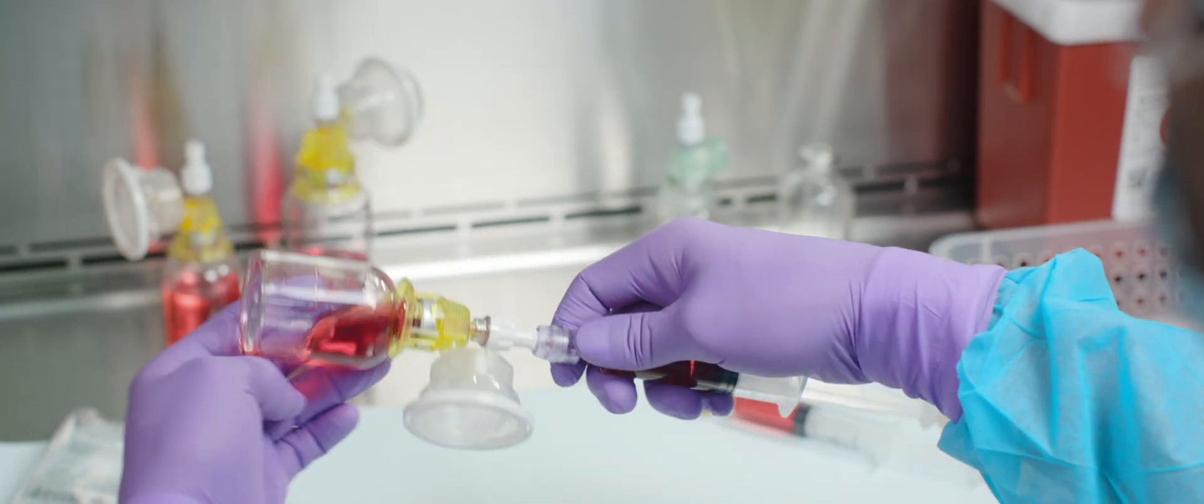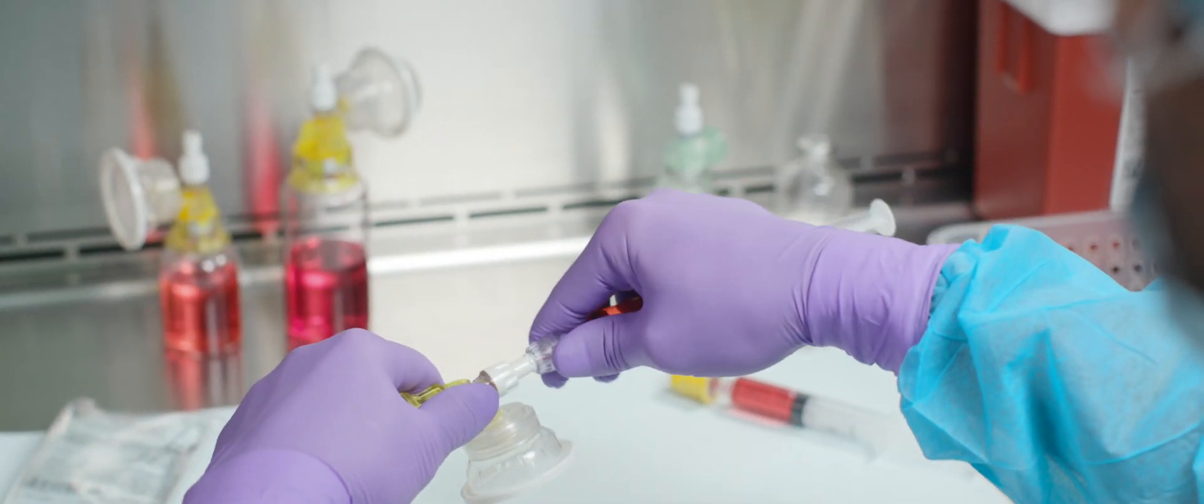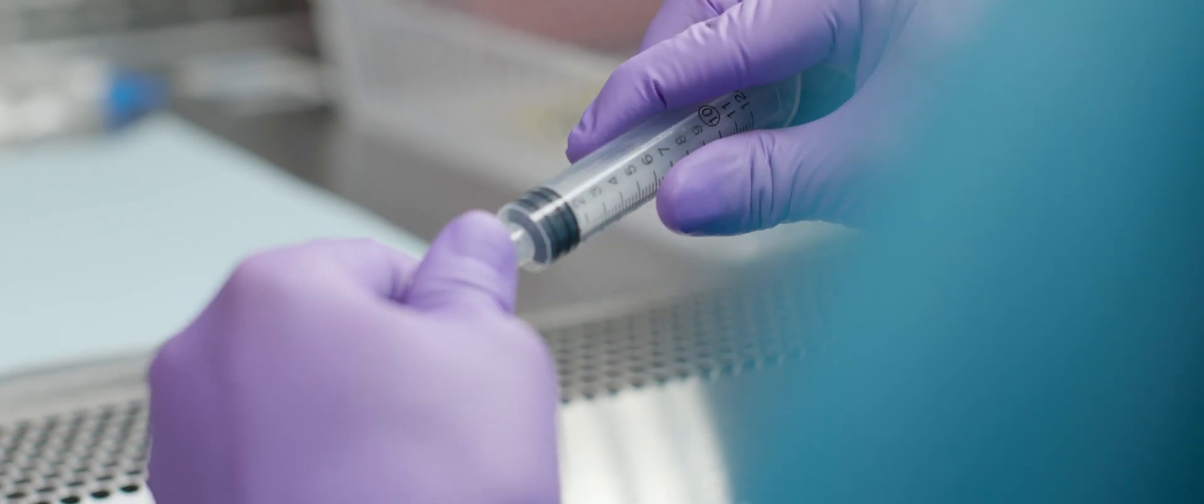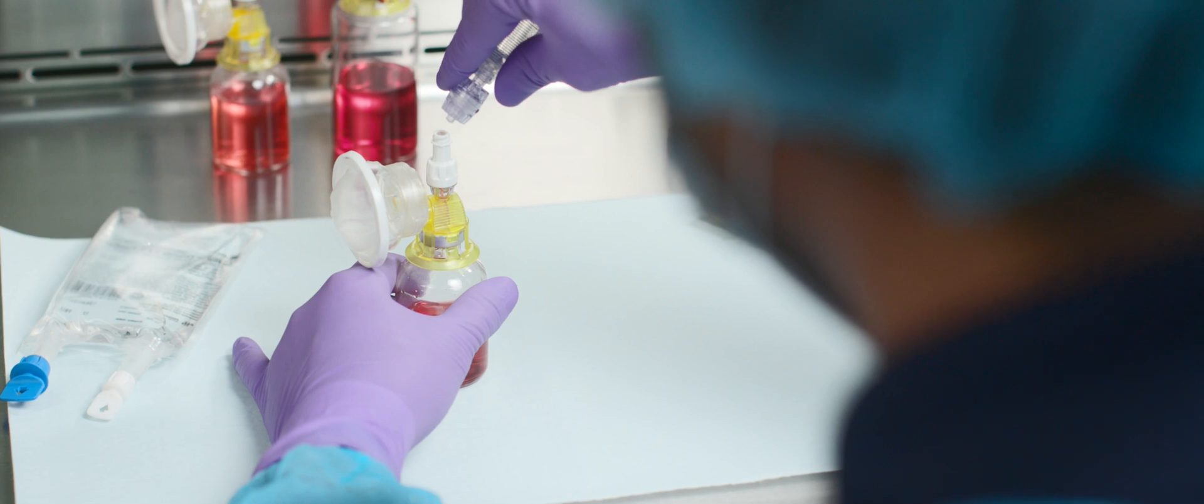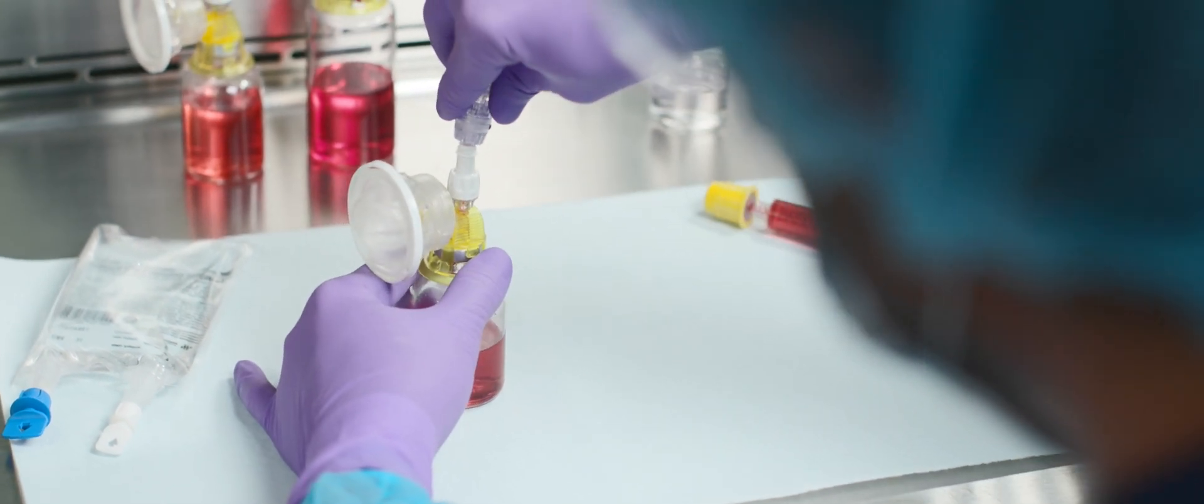To ensure ease of use, there is no need to pre-prime a syringe with air prior to attaching to the vial. That means one less step during compounding, reducing time and risk for error.